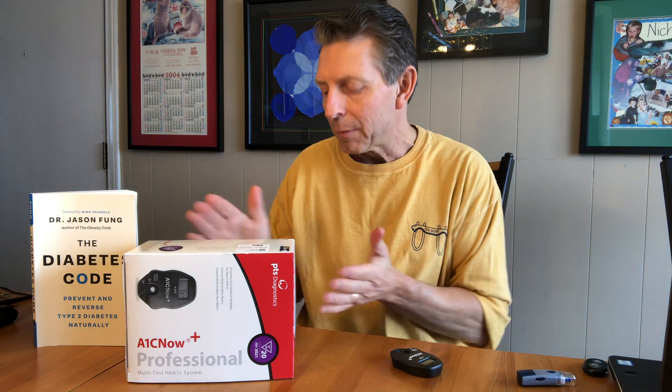So this is how easy it is. How much does this cost our patients? It's about $7 a test. It's valuable information to know, because if you see a number that's way out of range — we'd love to have numbers well below 7, which is what we consider controlled diabetics. For patients with A1Cs in the high fives, these are patients we should be doing other glucose monitoring exercises on and making them aware that they should get their physician involved in blood sugar management. Because one of the lessons we learned from Dr. Brewer and from many others is that insulin resistance is the number one risk factor for heart disease — and it's a huge problem. We know there's a bidirectional relationship between periodontal disease and blood sugar metabolism issues, so it's something we want to look for in all of our patient base.